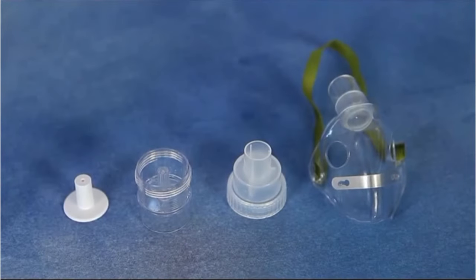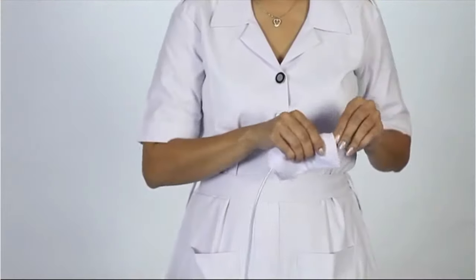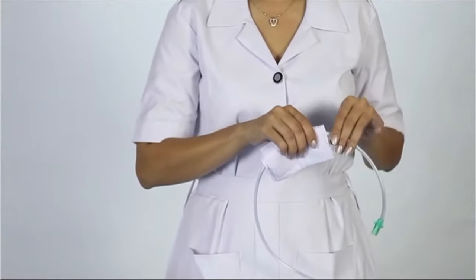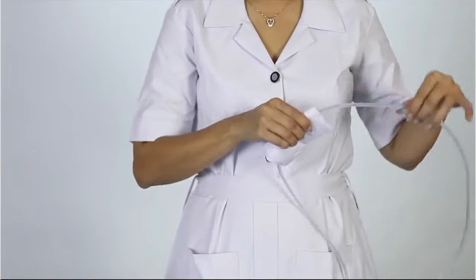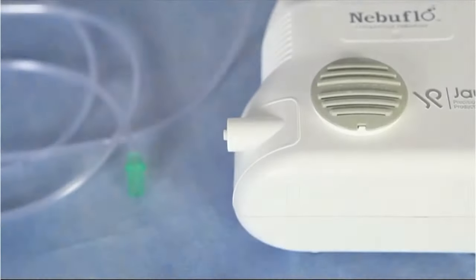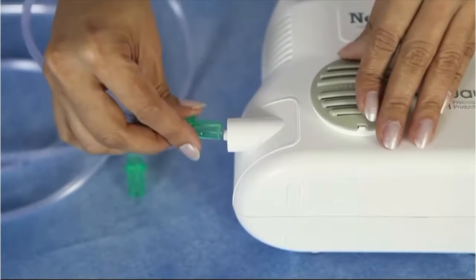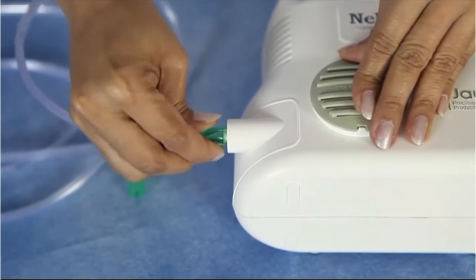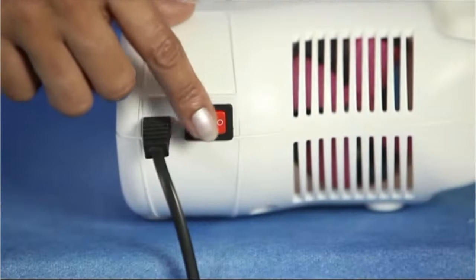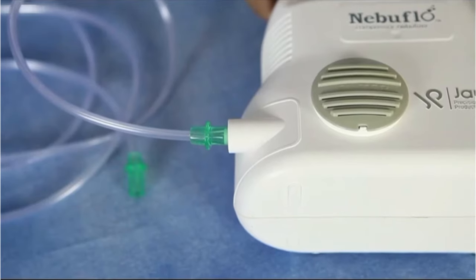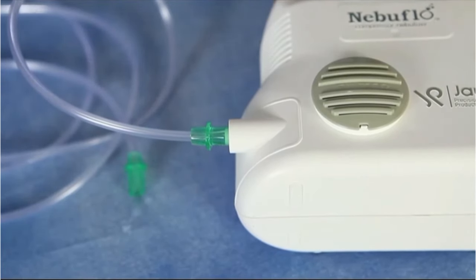Allow to air dry. Cleaning the tubing: keep the outer surface of the tubing dust-free by wiping it regularly. If you notice liquid droplets in the tubing, connect the tubing to the compressor outlet, switch on the compressor, and blow air through the tubing for a few seconds.